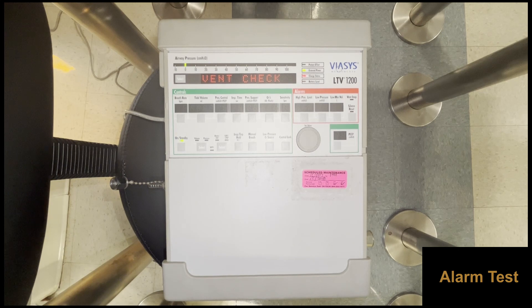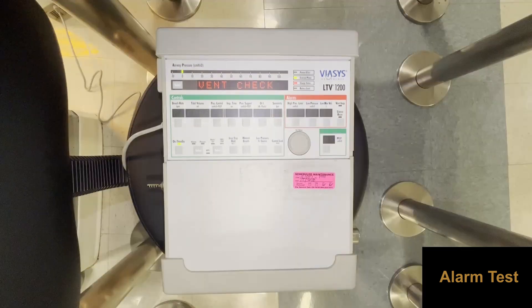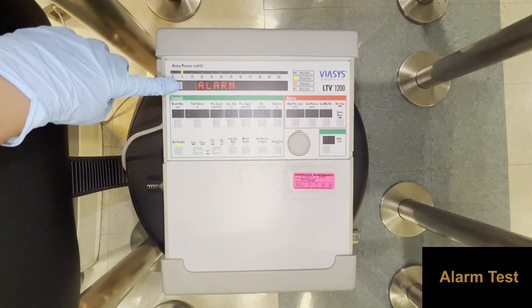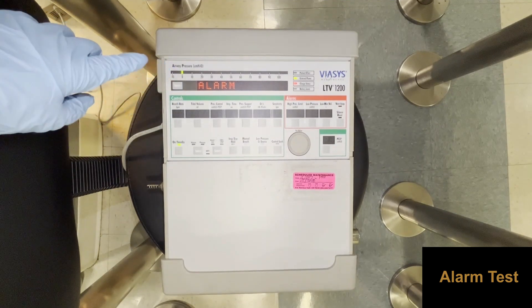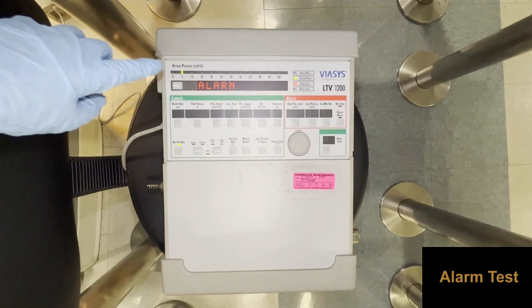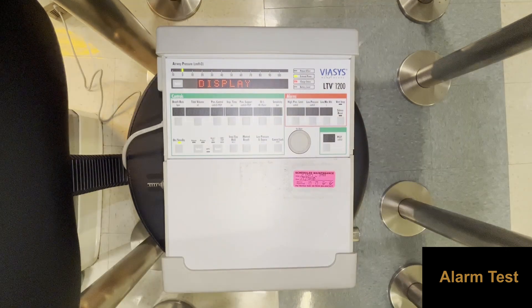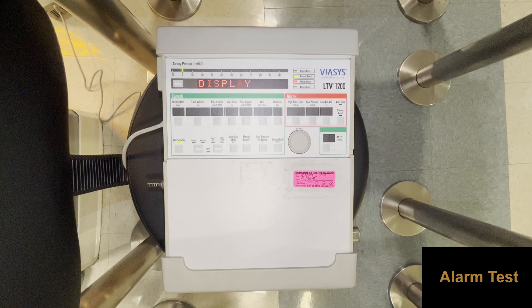The alarm test verifies that the audible alarm is working properly. Here we show that the LTV 1200 alarm option is selected. The ventilator passes the alarm test if the alarm sounds for at least two seconds. For ventilators with an audio sound symbol, verify that a confirming chirp plays after the alarm is silenced.